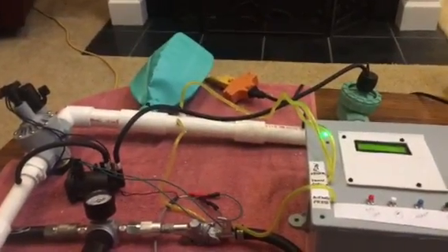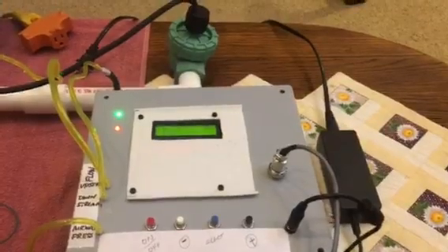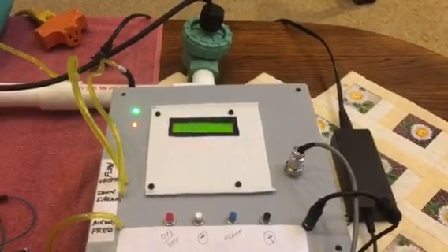I'm going to disconnect the AC power — you can see what happens when I do that. AC power is provided by a medical grade power supply. The system automatically went to batteries.